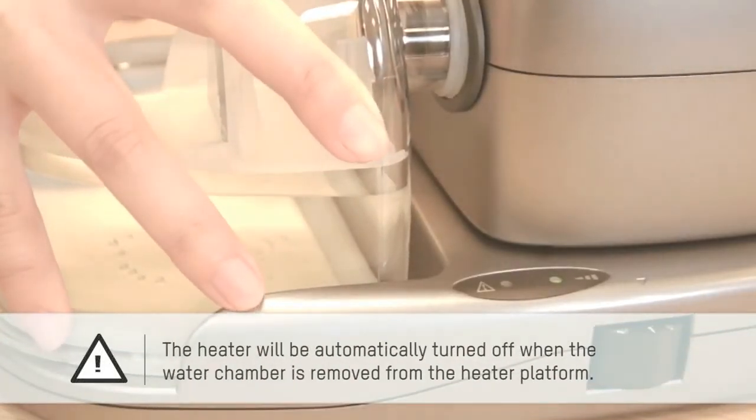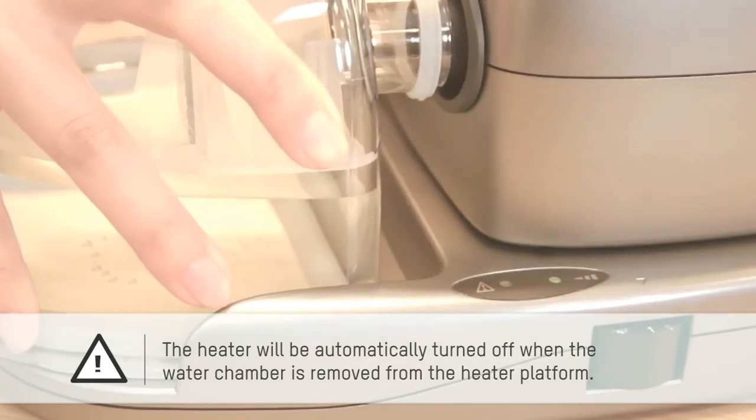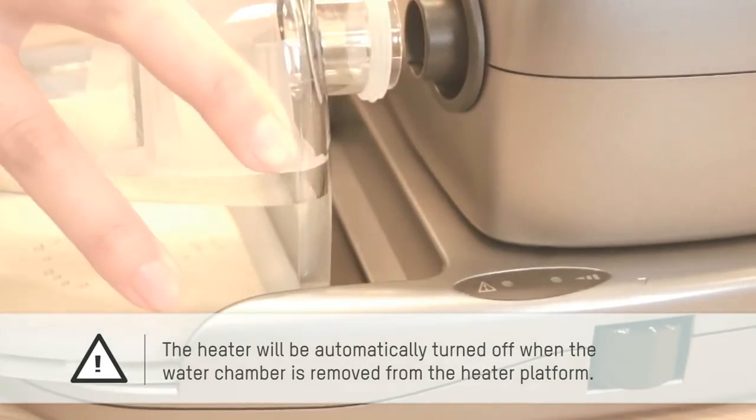The heater will be automatically turned off when the water chamber is removed from the heater platform.